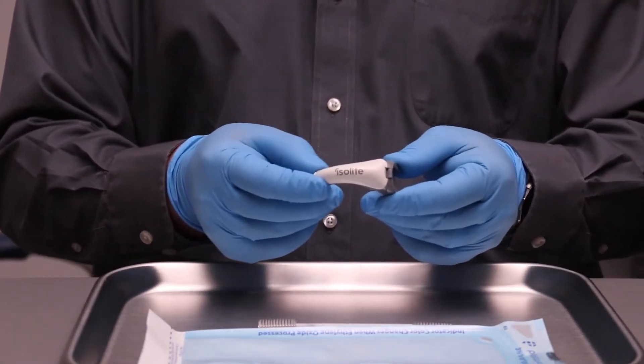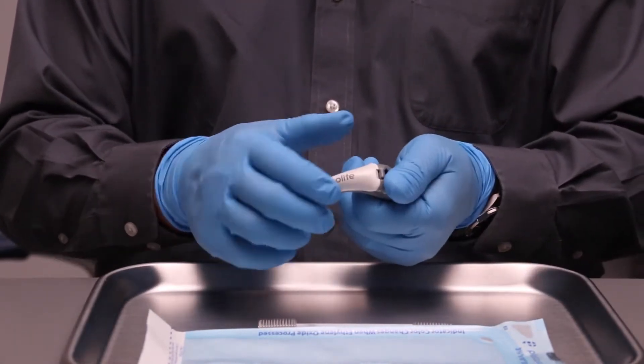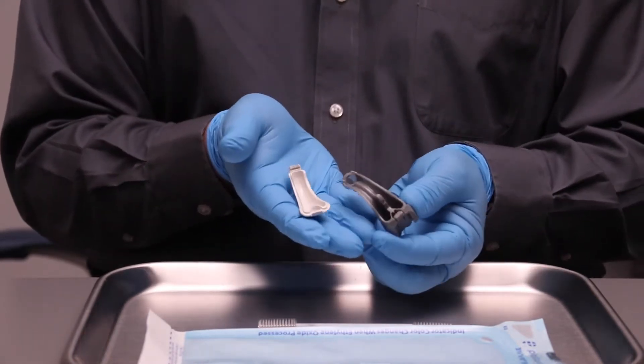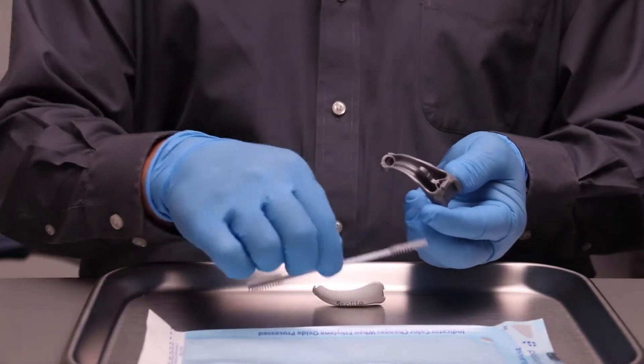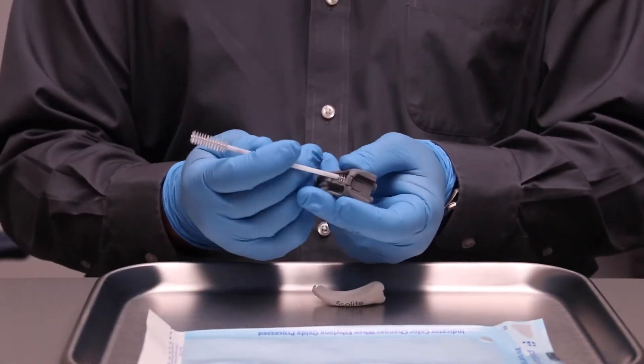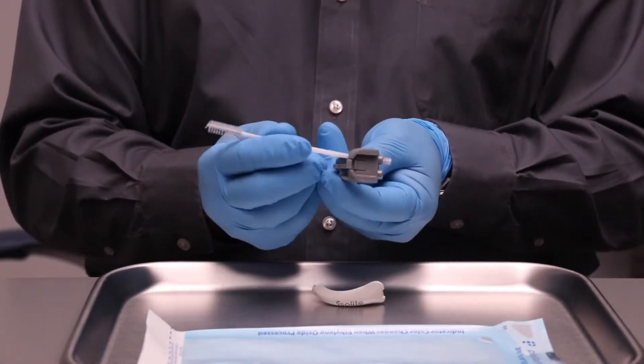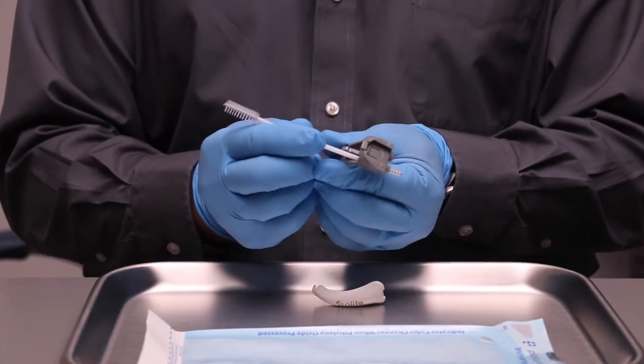Grasp the base and separate the upper portion by grabbing the sides. Take your double-ended cleaning brush and using a pH-neutral cleaning solution, clean the insides, removing any debris or material that may have collected during the course of your procedure.